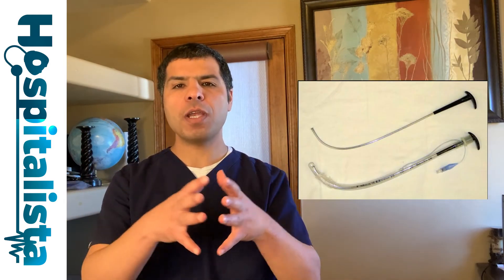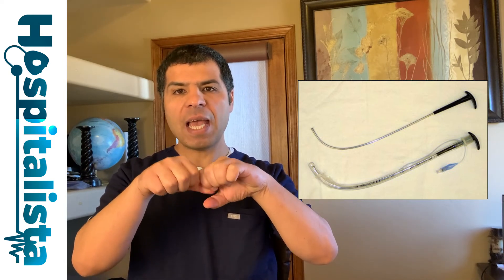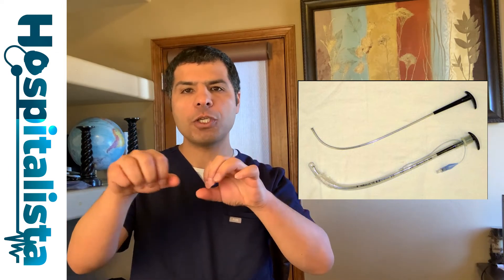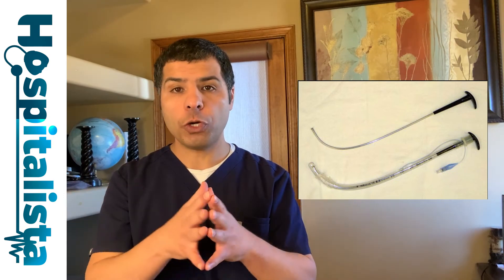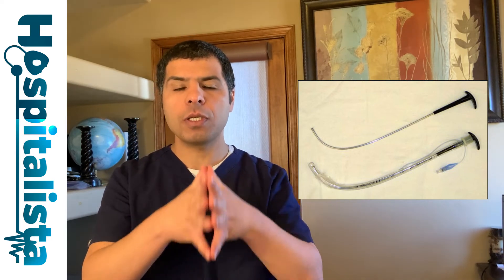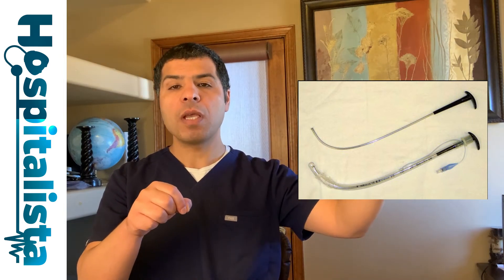The stylet is a device inserted into the ET tube to stiffen it and allow you to shape it — for example, into a C-shape or hockey-stick shape. This prevents the tube from kinking when you push it through the trachea. It's very important to ensure the stylet is properly inserted and that its tip does not protrude beyond the distal end of the endotracheal tube.